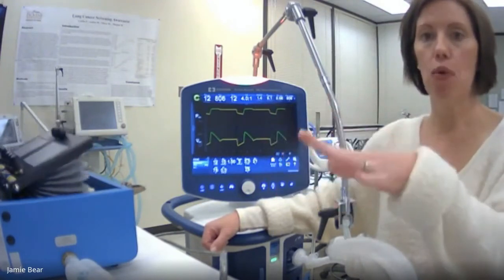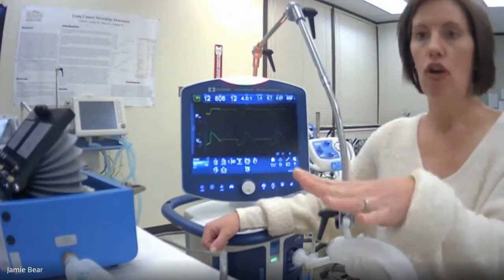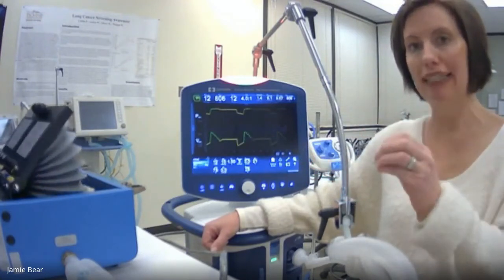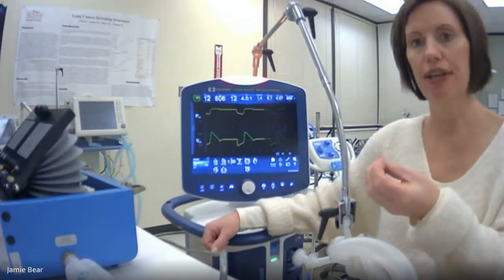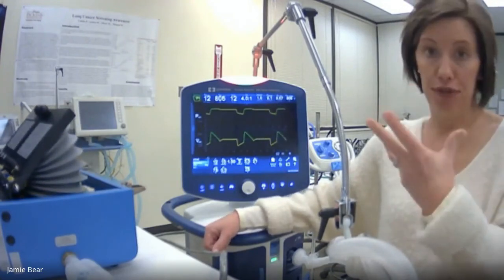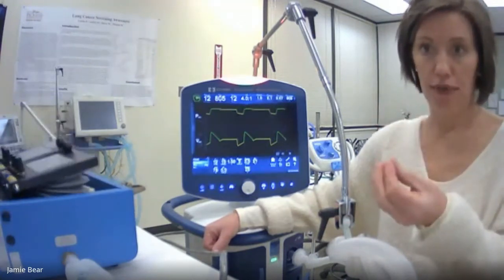This is called the open lung strategy. And so it'll hopefully reduce those large pressure swings, those consistent high pressure swings, so that the patient won't get the lung injury that you might get on conventional.